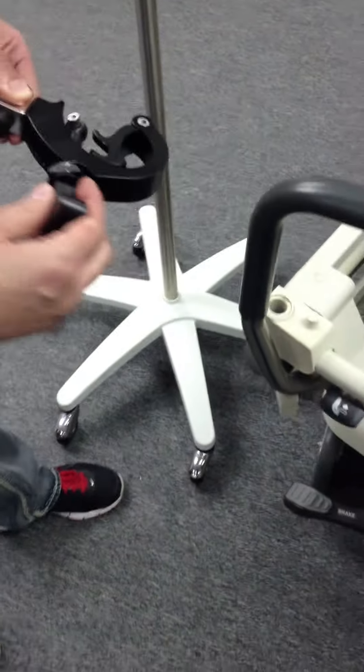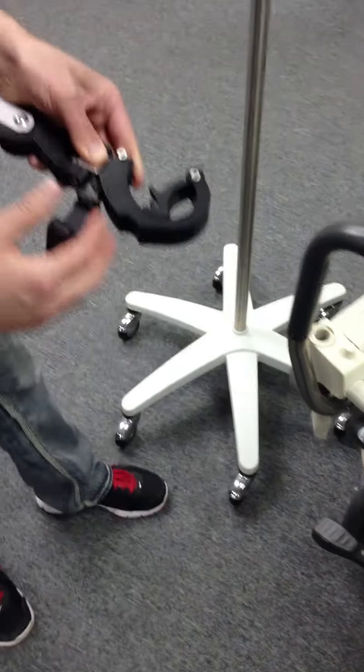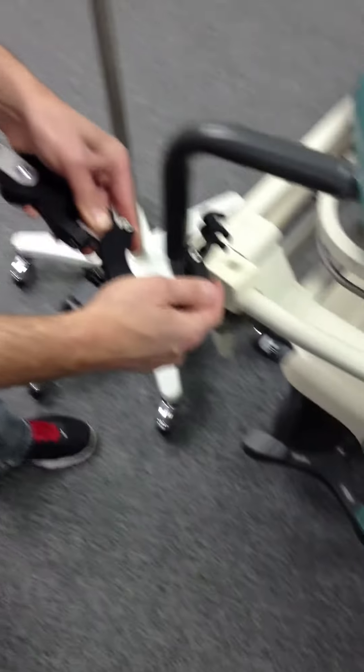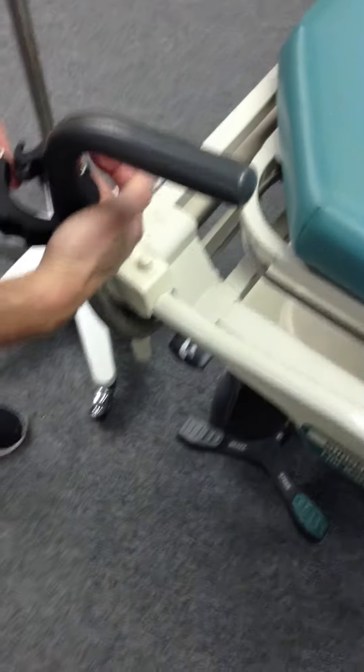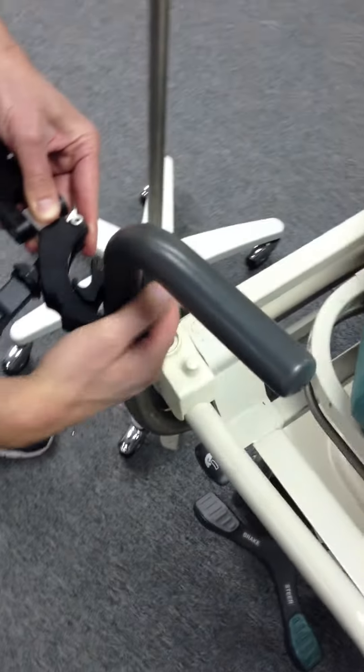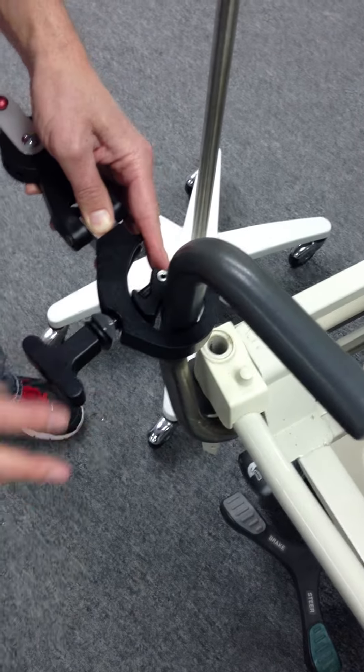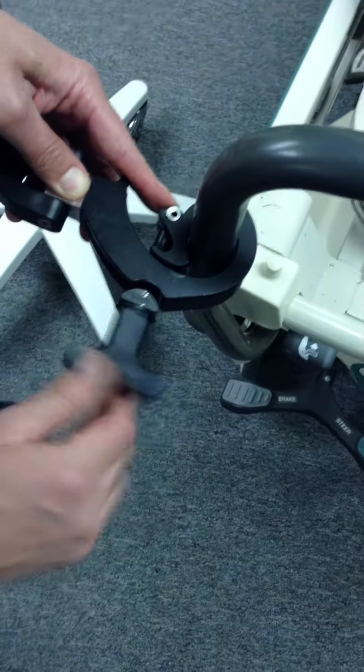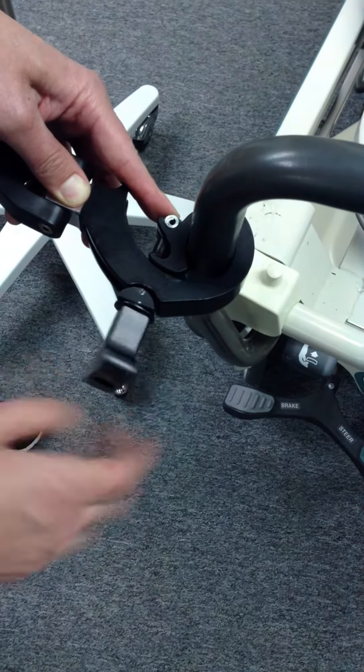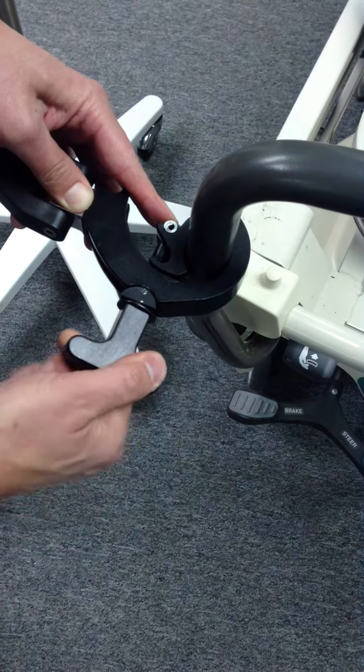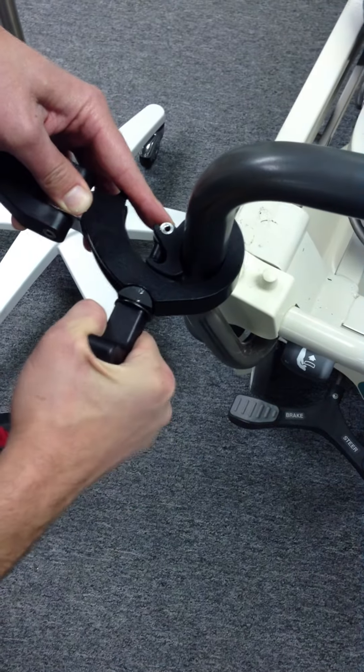So you simply move the handle out of the way, slide this around whatever you're going to attach the clamp to. Tighten the clamp tight.